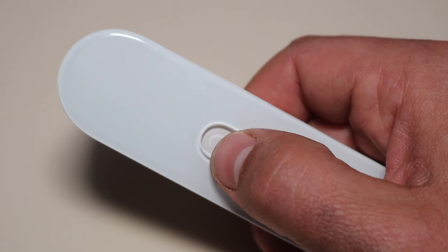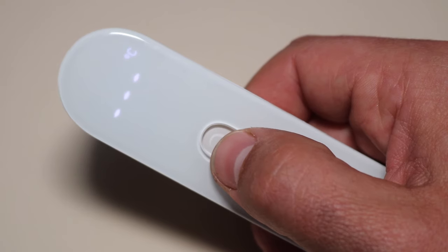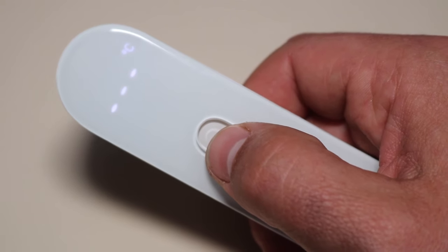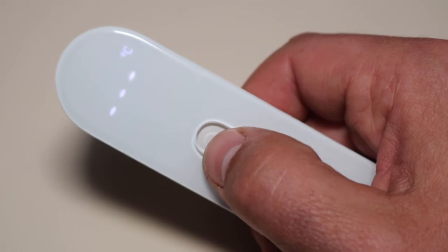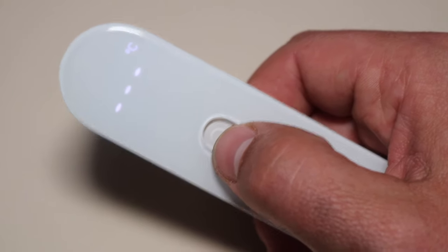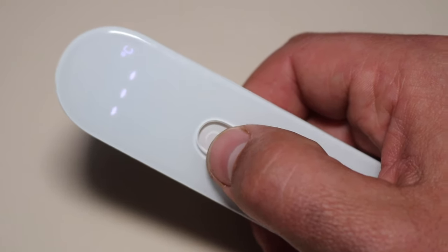Now when you click it back on, it will be Celsius. So that is an easy way of changing it from Celsius to Fahrenheit.